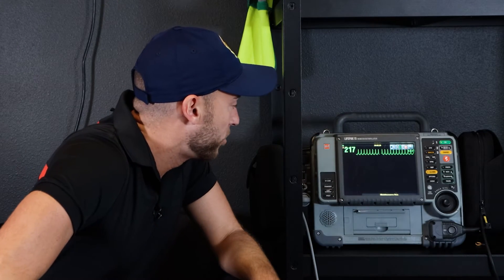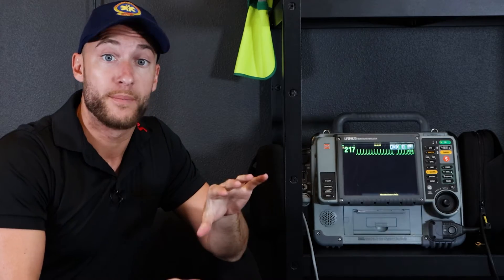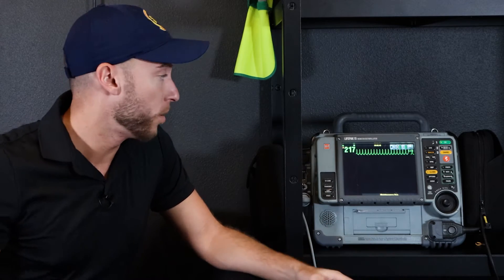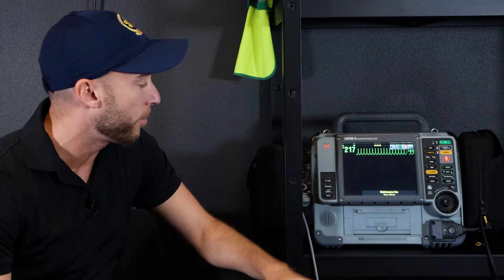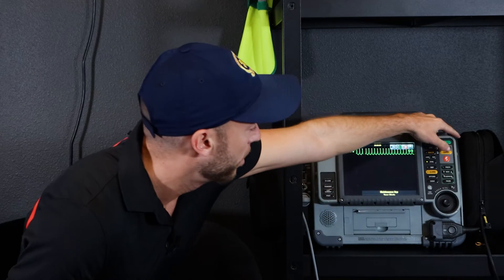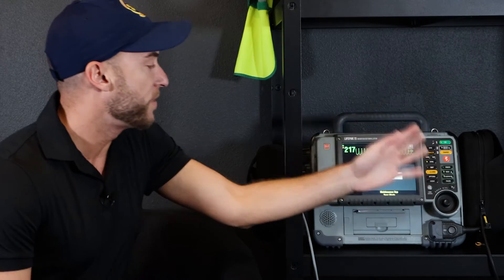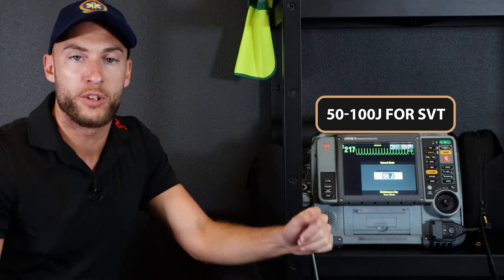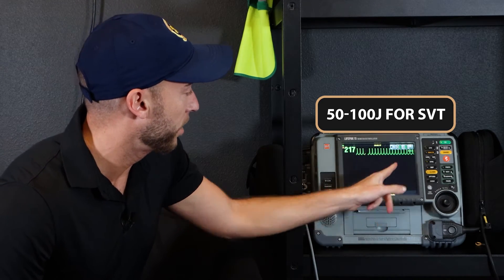We're in SVT, rate is 217 — we have to take action. They're unstable: either unresponsive or altered mental status. They're complaining of chest pain, difficulty breathing, palpitations. Blood pressure is low. Here's what we do: first I hit my sync button for a synchronized shock. When I hit my sync button, these little triangles go on top of the QRS complex. Now I know I'm in sync mode. Energy selection — let's say we're going to go with 50 joules. The range for SVT is 50 to 100. Let's start with 50 for this patient. Our 50 is locked in the corner.